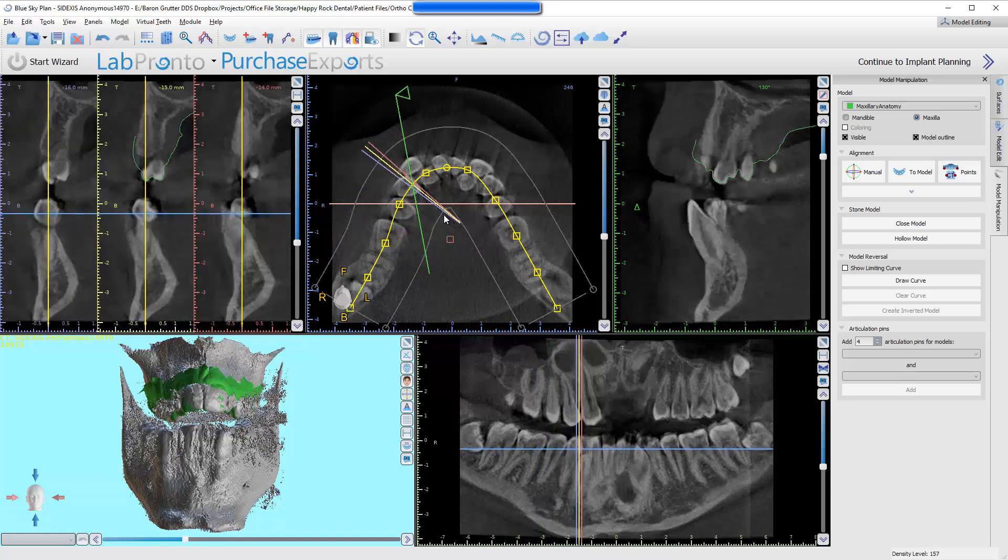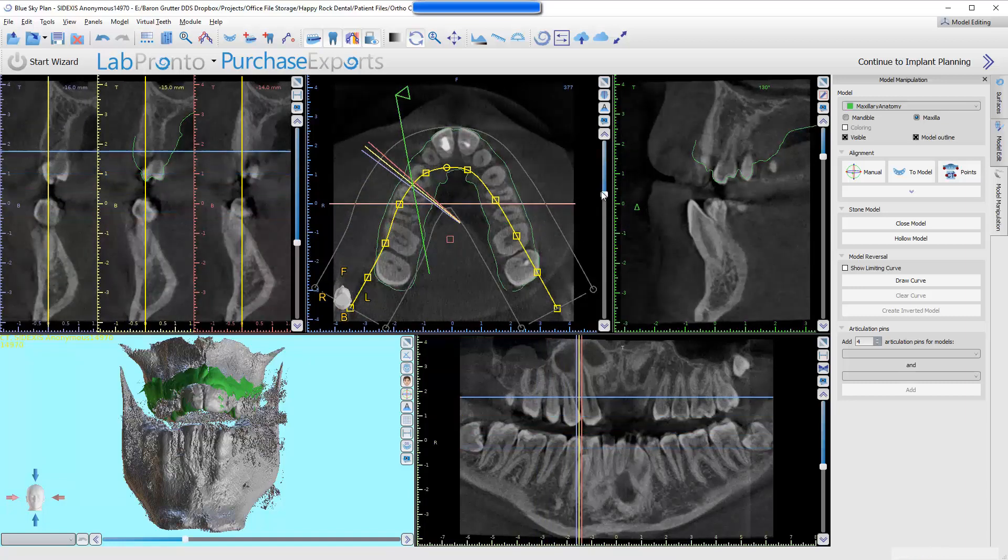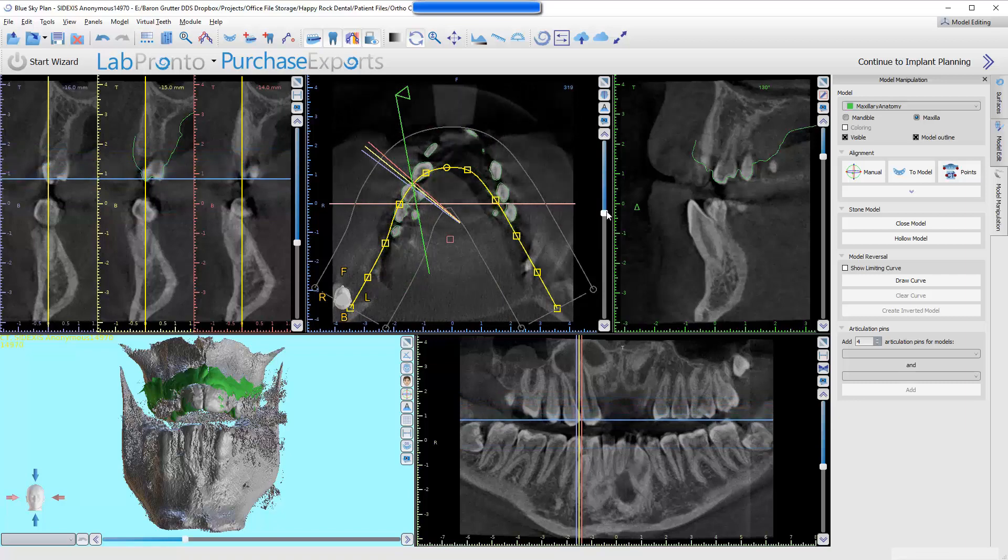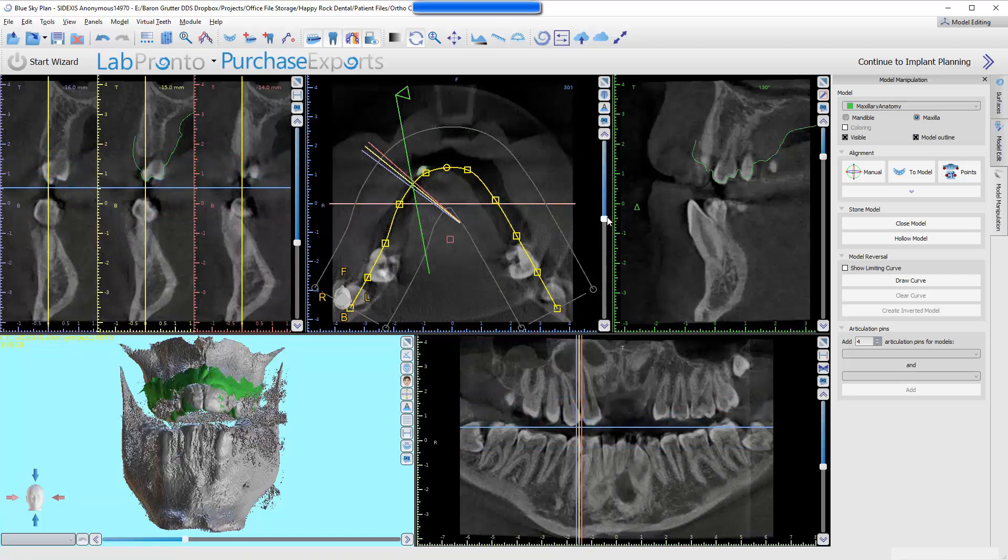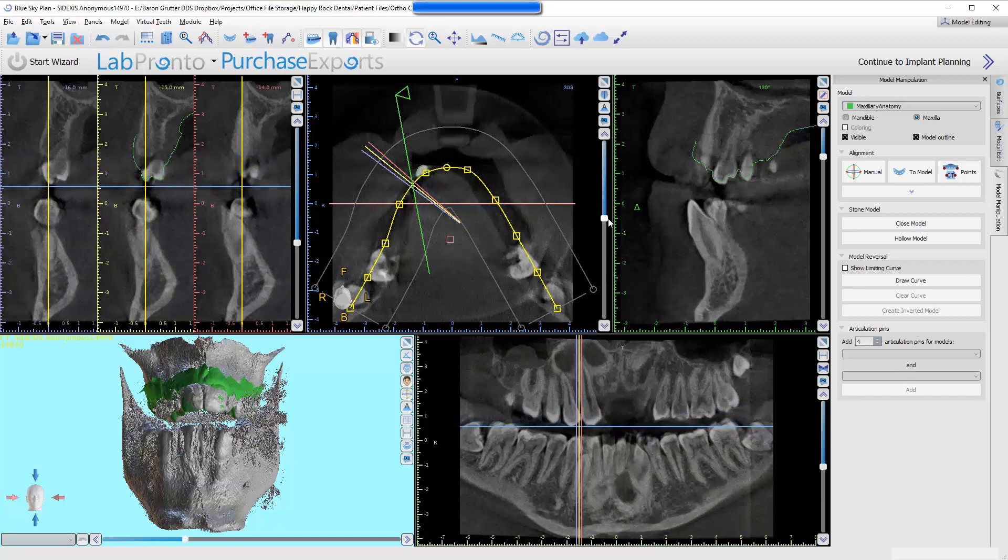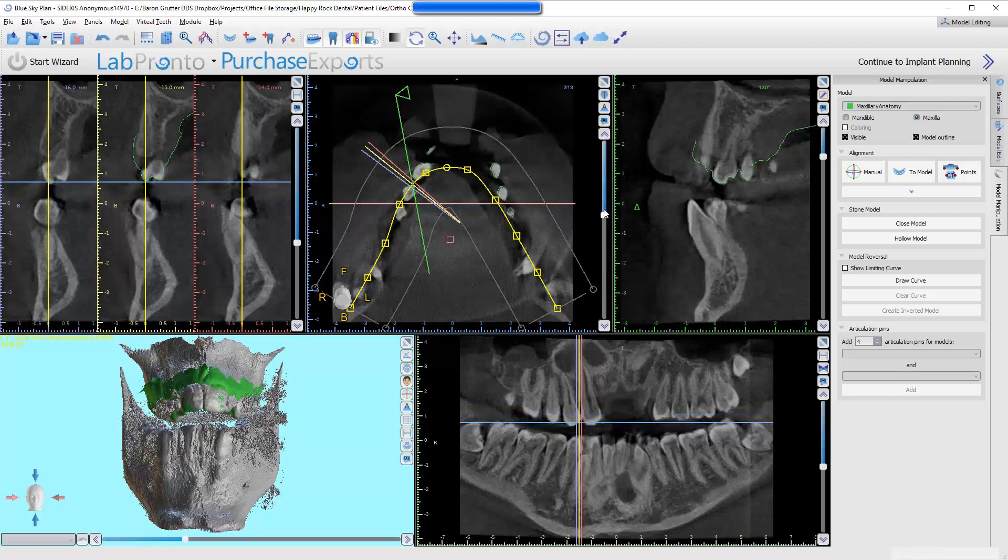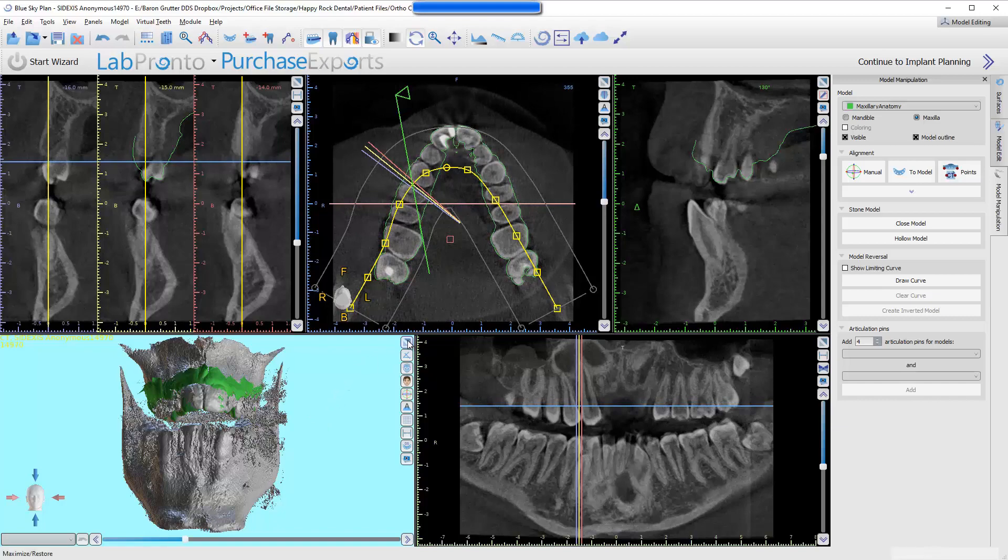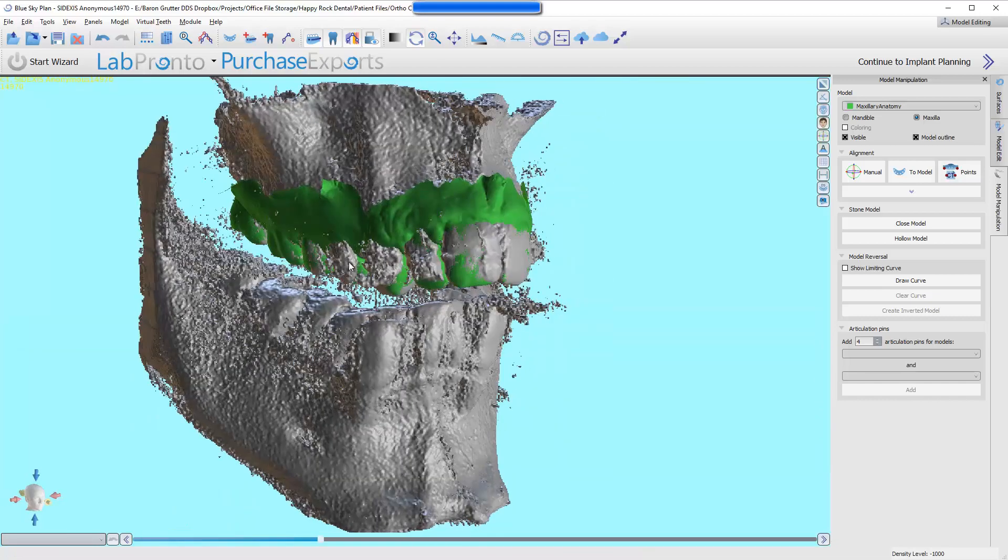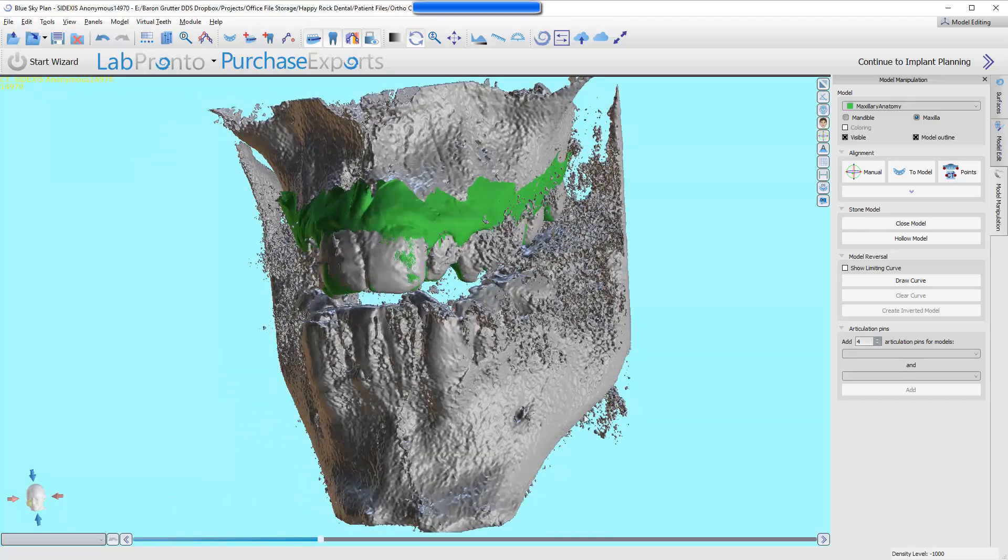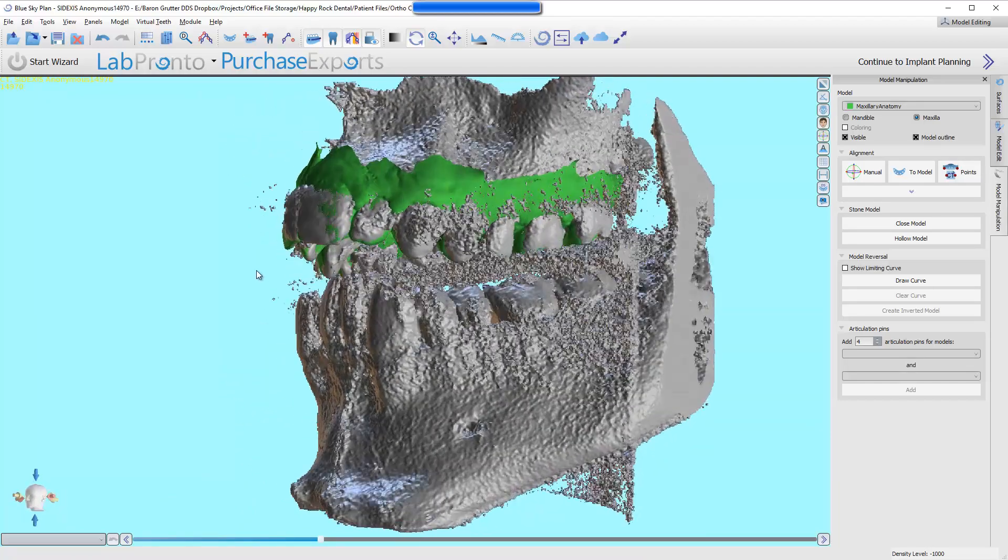I also will come up to this view and look at it from this view. You can see that as his cusp tips and then sides of the edges disappear, the outline is also disappearing, the green outline. I'm just grabbing this slider. You can also wheel your mouse button up and down. All this is doing is making sure that these two, the green STL model of the patient's mouth and the DICOM data set, are aligned.